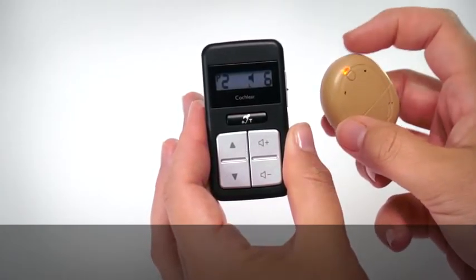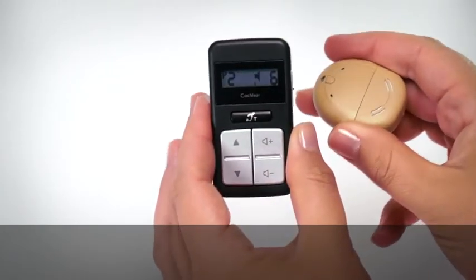Place the Kanso on the back of your remote control. The remote control will show pairing in progress. The remote control then shows successful pairing of either left or right processor. If you have two processors, repeat for your second processor.